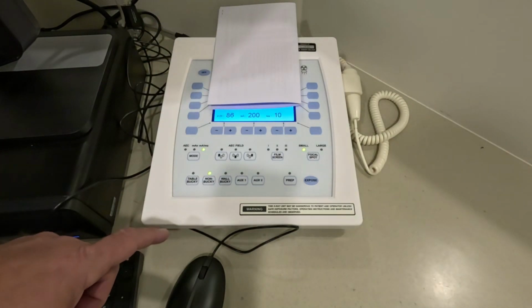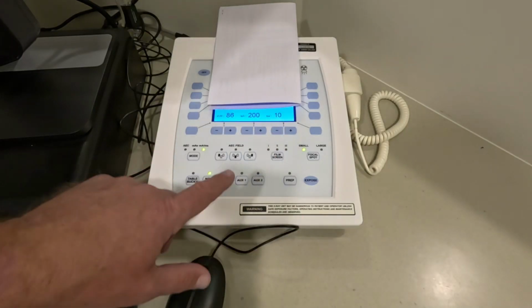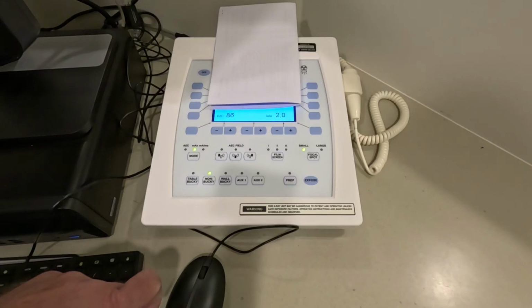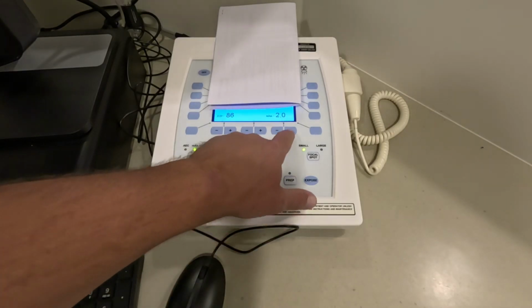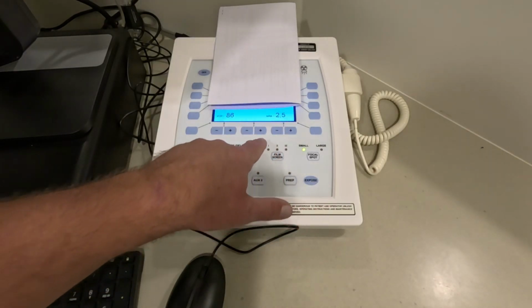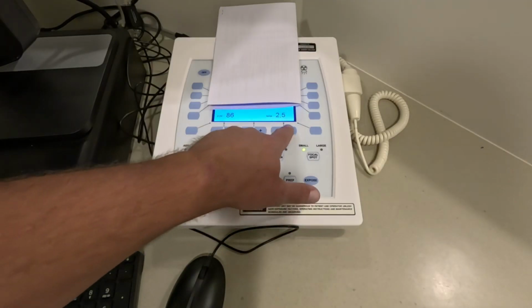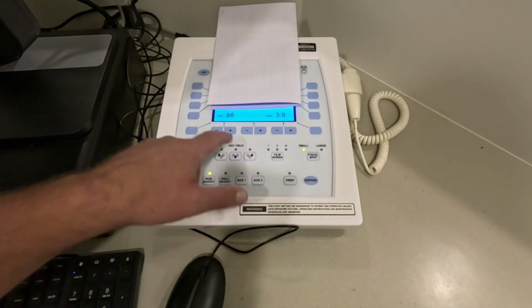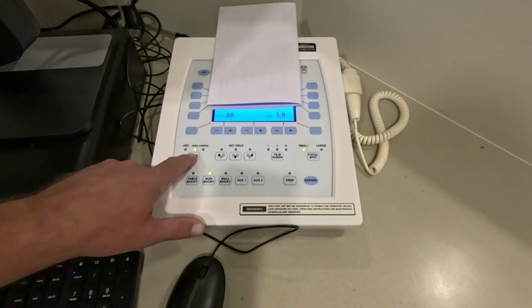This machine gives us the option of selecting mA and time separately. You can have a mAs calculation where you just do one. And in this case, you've got a situation where you can't control the mA. It's giving you a set mA, and you can adjust your time to affect a change in overall mAs.